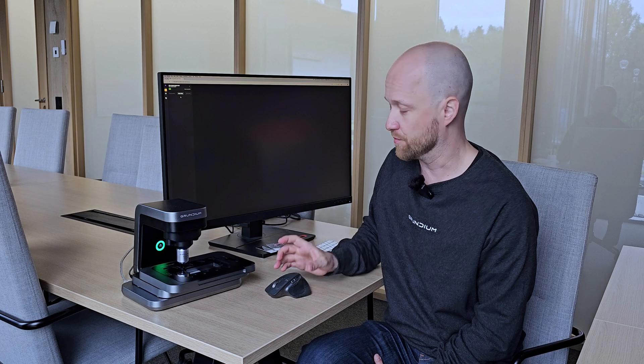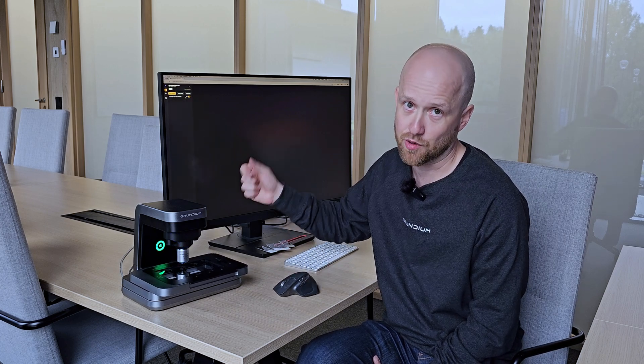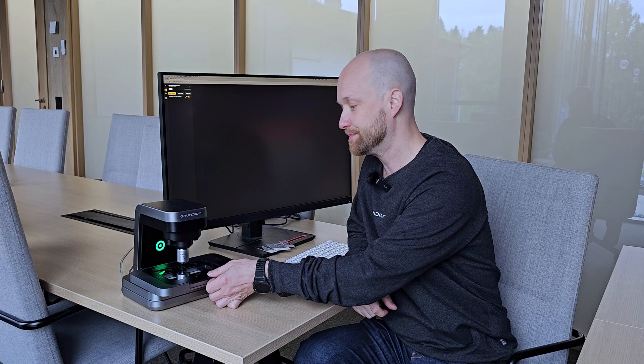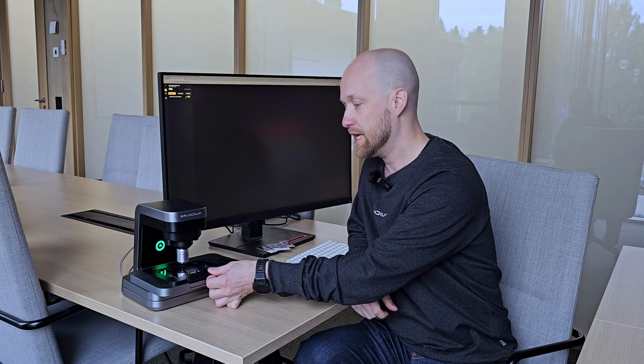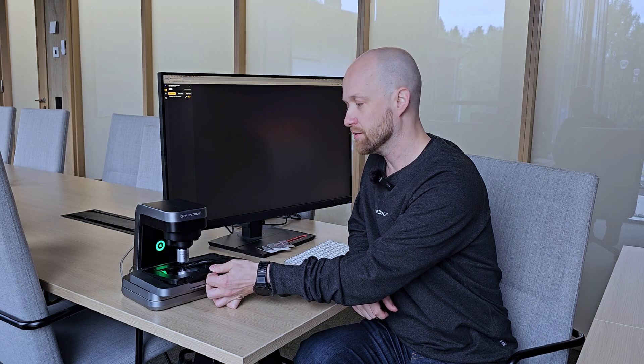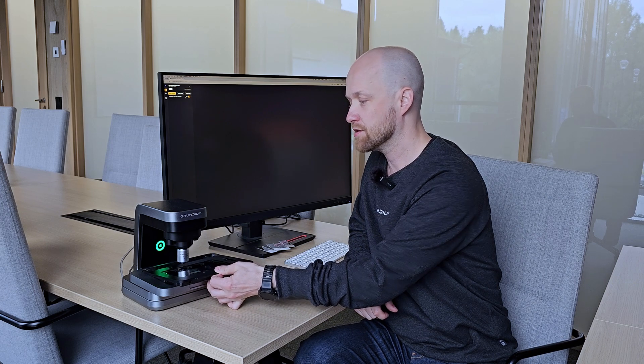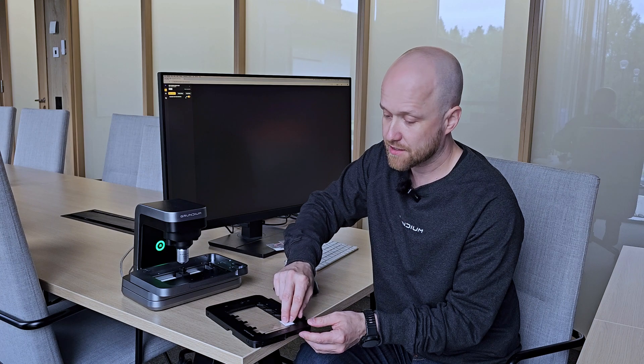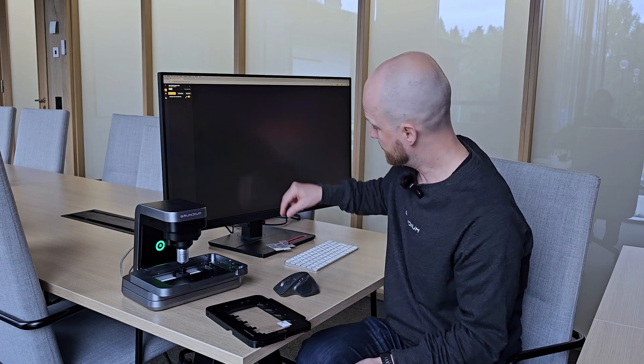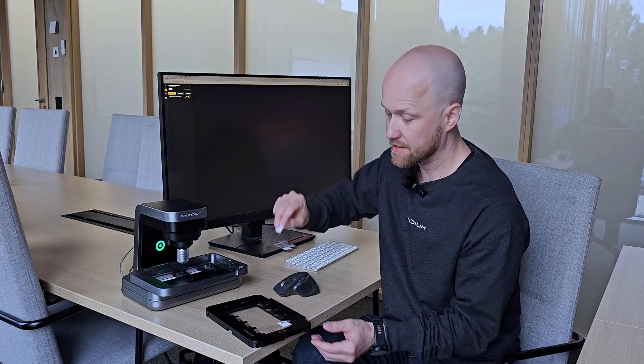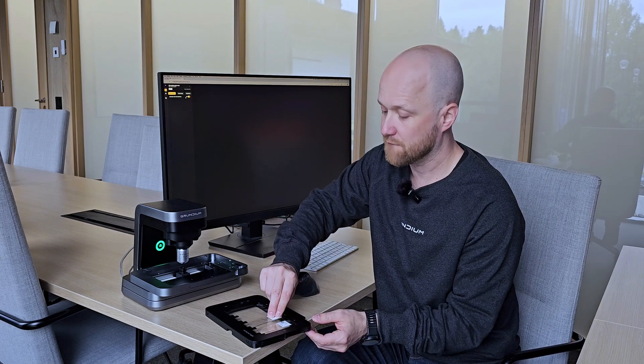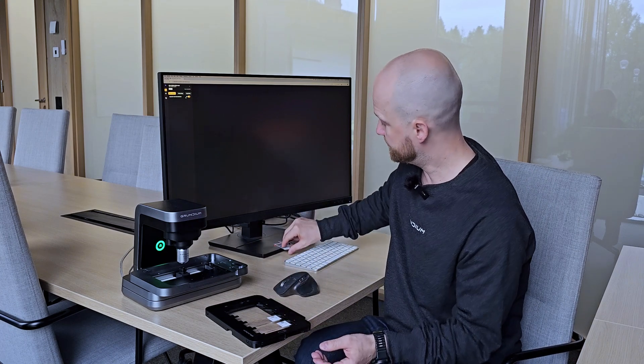From here we can open the stage from the UI or we can also click the button on the arm. That's different from the previous models. We don't have to access the UI to be able to open the stage. And with the M models we can also remove the tray. And then we'll just add slides on the tray, four all together.